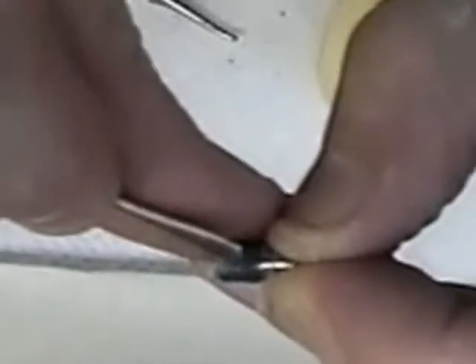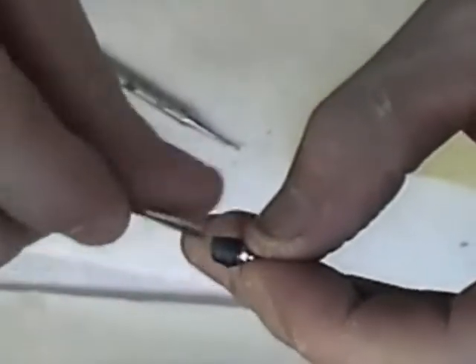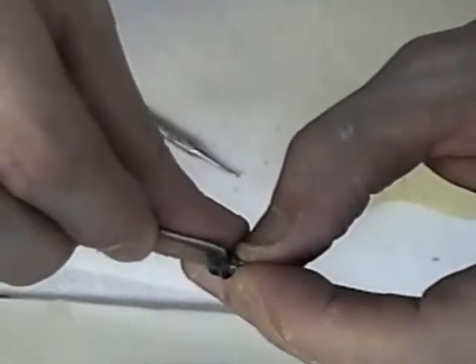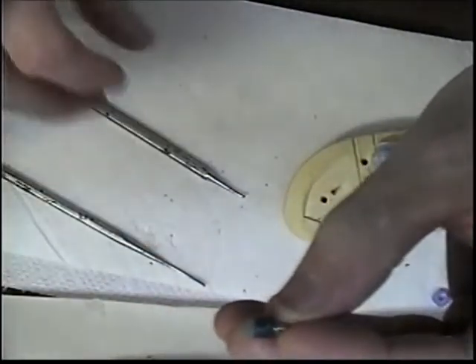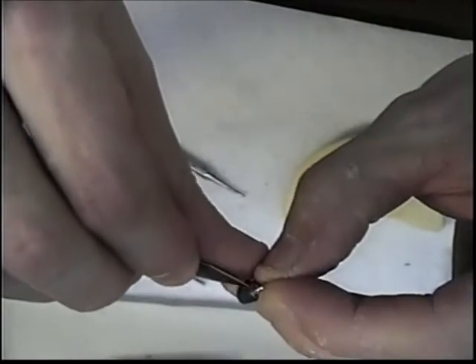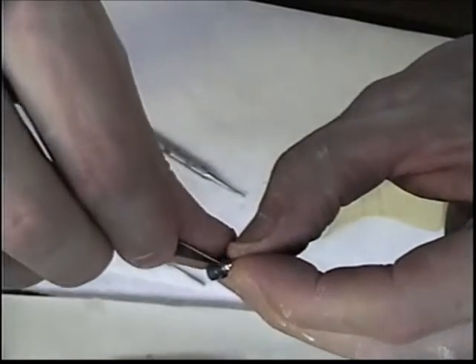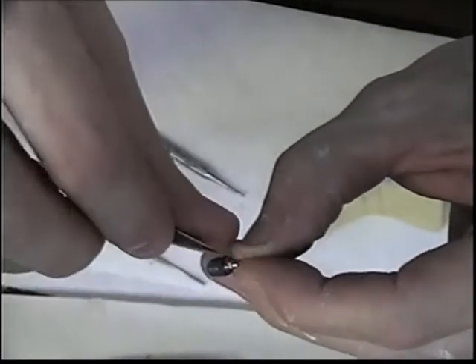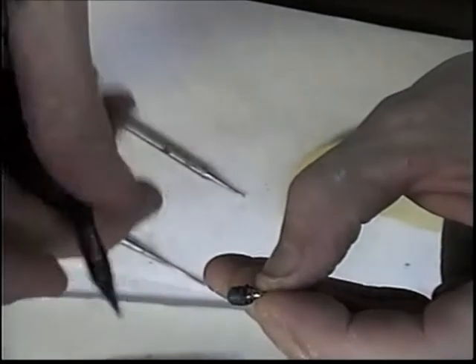I can define the margin a little bit just to get a little idea of what it's going to look like. And it's important that I don't have any wax coming over the metal platform, otherwise that will cast into the hex areas of the implant here.